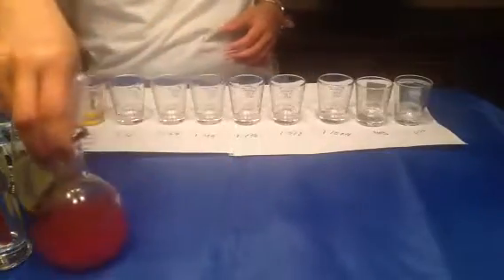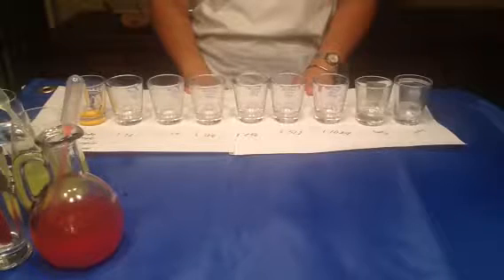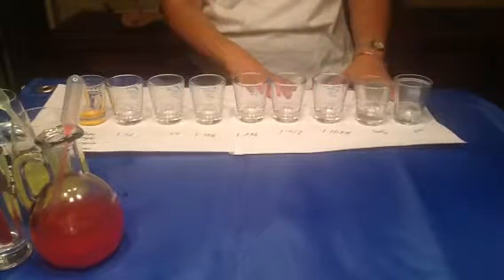Okay. Now all of my 6 tubes in the dilution series have 1 ml of sample, which contains 500 microliters of diluted serum and 500 microliters of 2% red cell suspension. So now we can incubate our 6 samples plus the positive and negative controls in the refrigerator at 4 degrees Celsius for 24 hours. After 24 hours, we're going to investigate the agglutination at the bottom of the test tube.